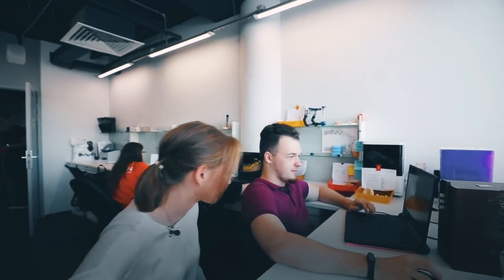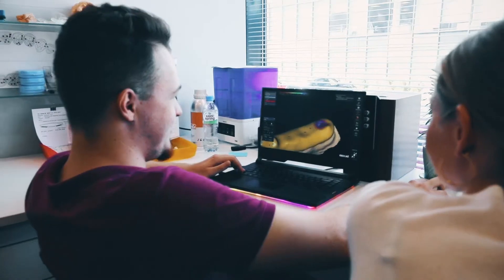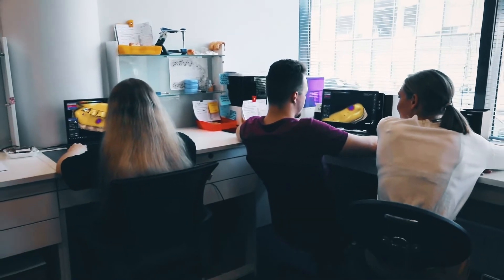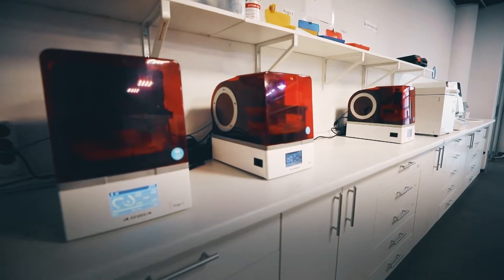My scans have arrived. So what exactly do you do here? I'm responsible for the initial evaluation of scans — that's my job. So you decide what's right for my teeth? No, the doctor does that. I'm a technician. I model the already existing construction, and then you send all this to the printer. Yes — all the magic happens right here.